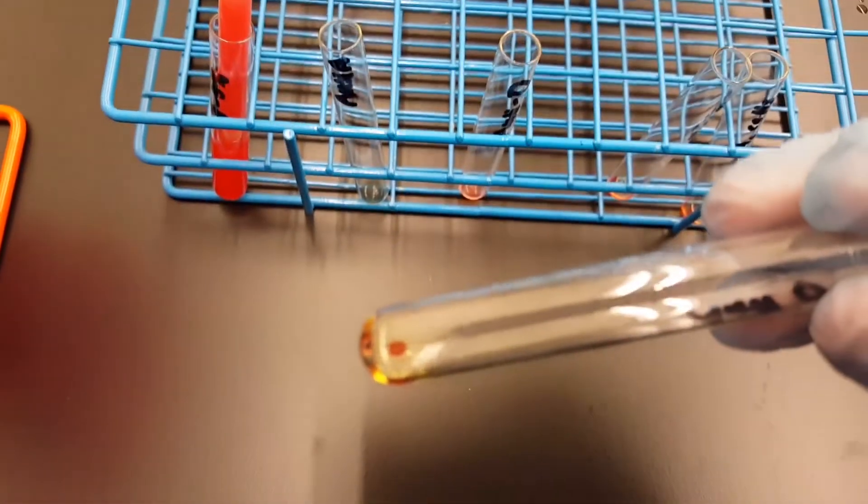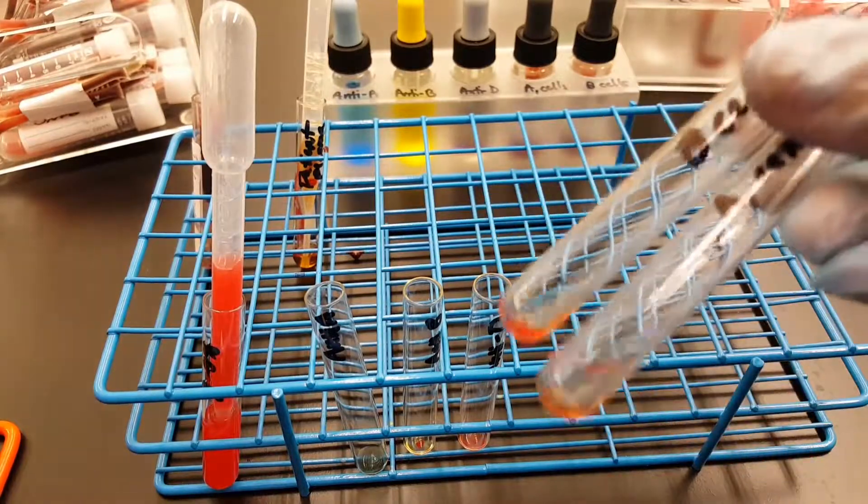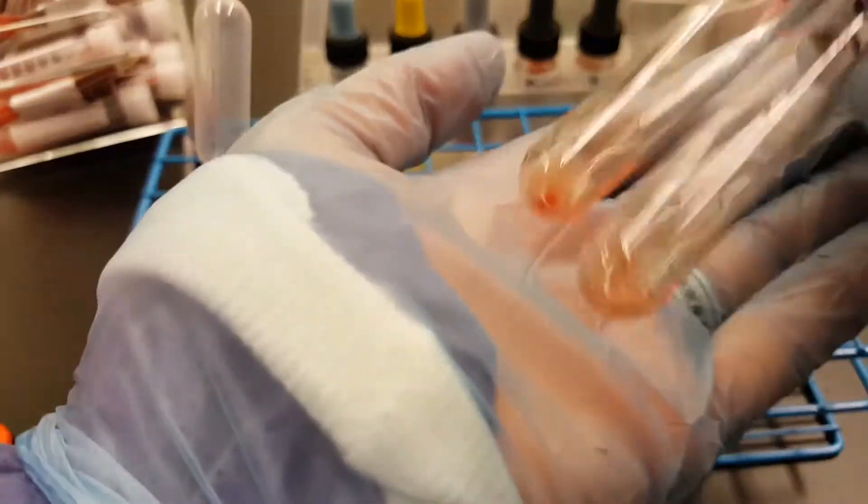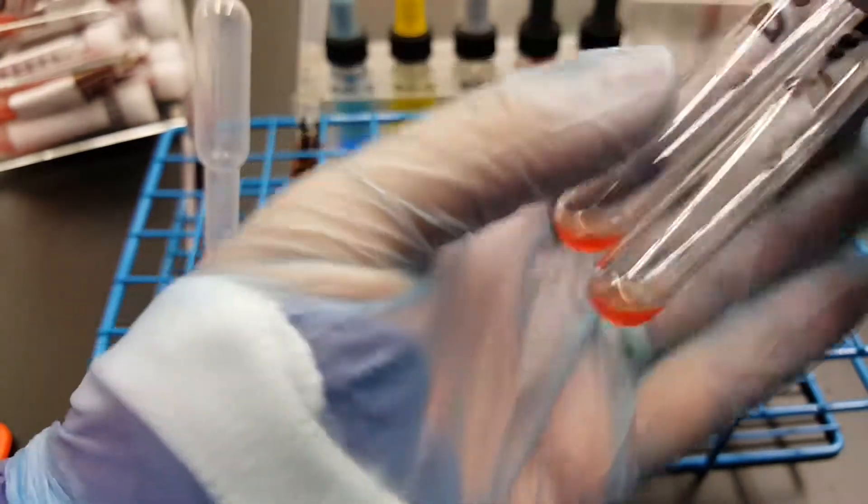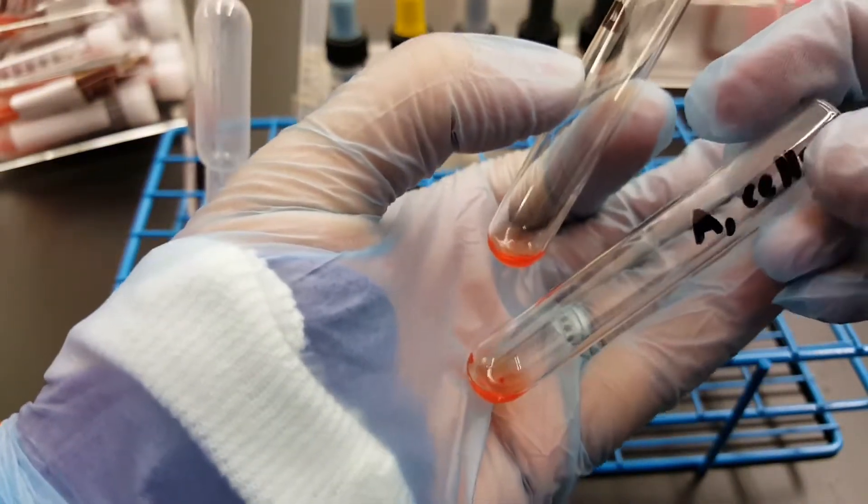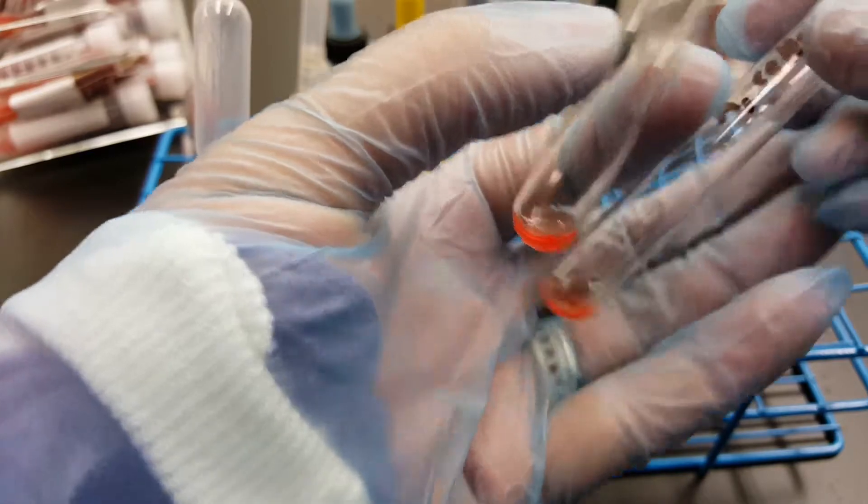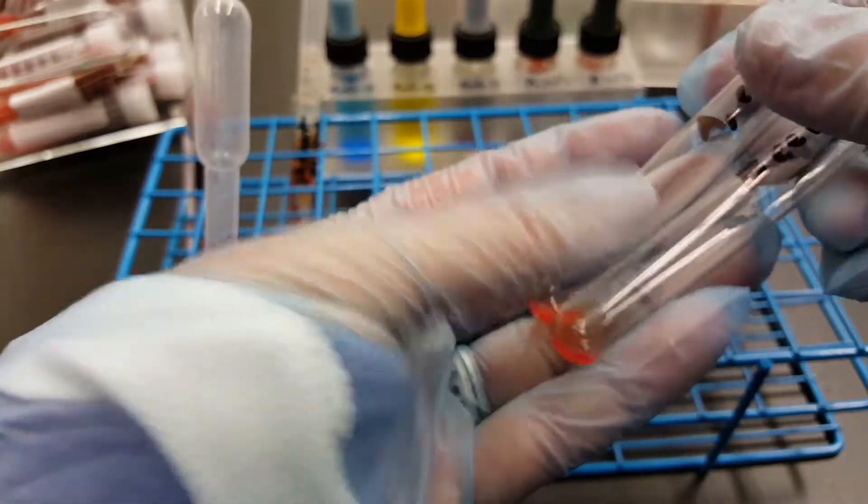Okay, so now we're doing our reverse typing. And I have a nice button over here on my A cells, so I got this backwards on my A cells, which is confirming that I had a correct B.